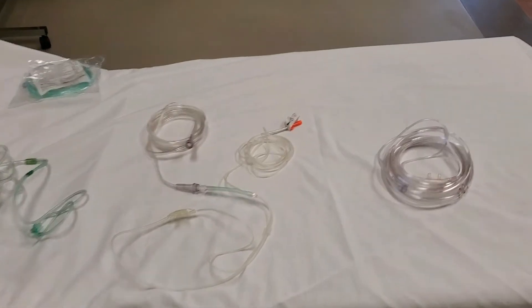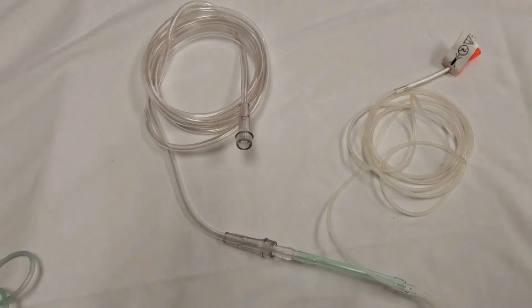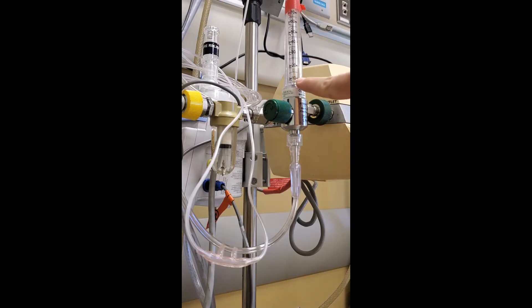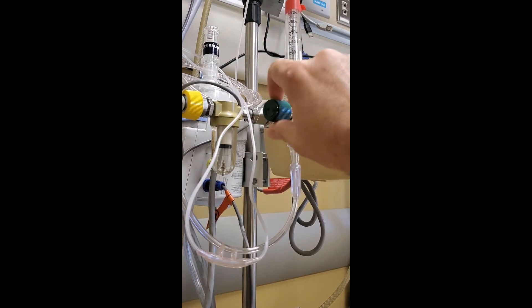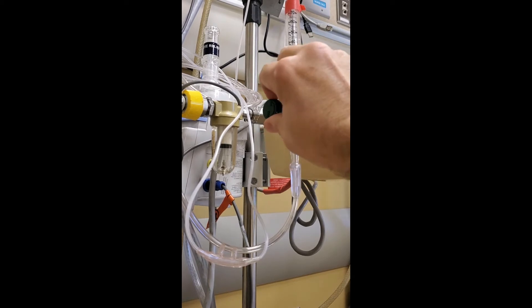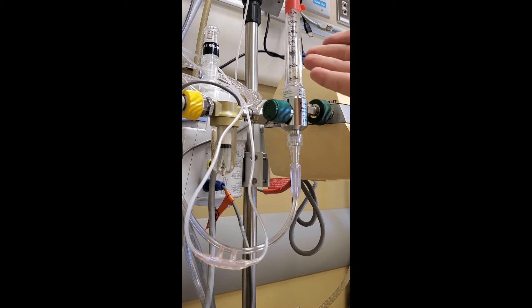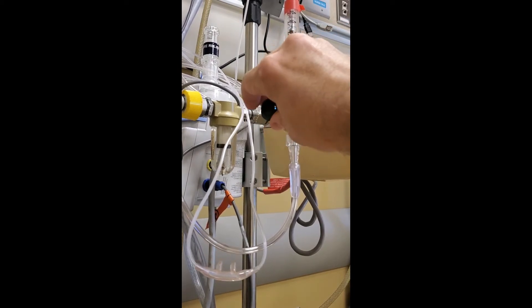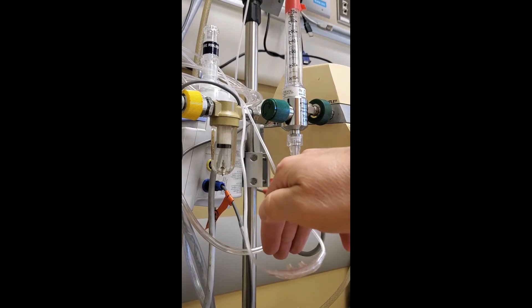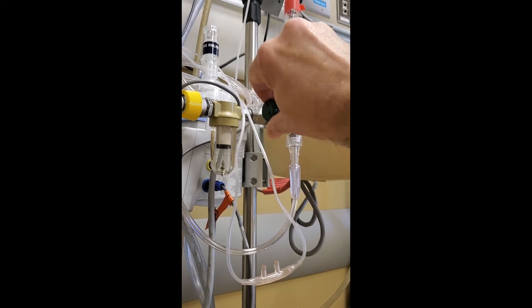So if the flow you set is actually 15 liters, you'll be able to see that 15 liters is showing up in the meter and know that it's true — making this the perfect device to test how much flow these cannulas will actually carry. I'm going to compare a regular standard nasal cannula to the end-tidal cannula. The argument has been that the end-tidal cannula will just pop right off the flowmeter if you turn flows above five liters a minute. This Thorpe tube flowmeter is from an older high-flow nasal cannula setup, going all the way up to 70 liters a minute. You're obviously not going to flow 70 liters a minute through a standard nasal cannula in practice — we're just doing it to prove that you can — but it will certainly carry the 15 liters you need.